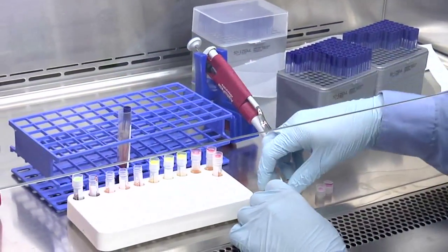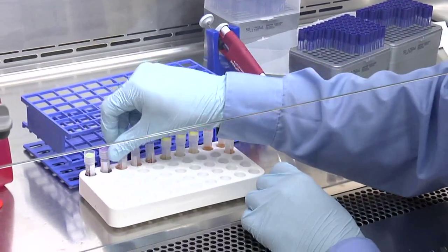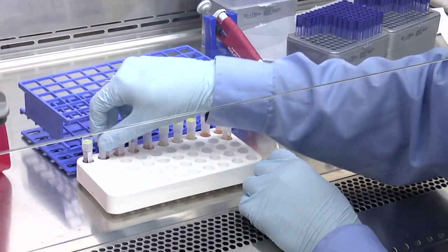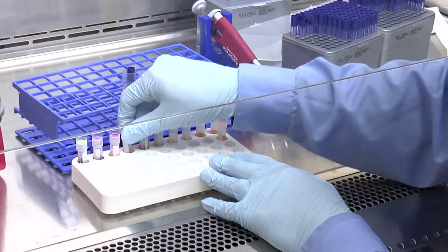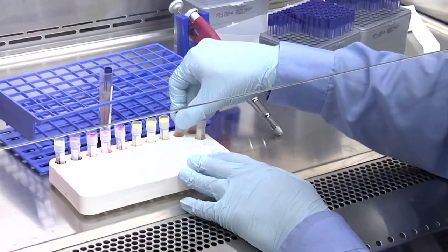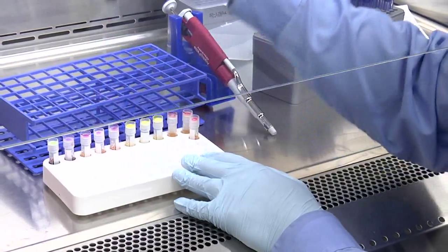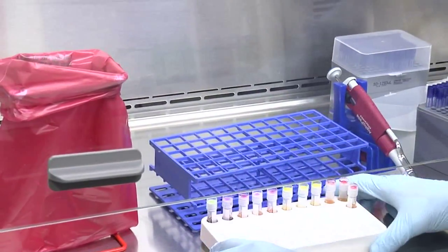The sample is complete. Place the caps back into each vial. Finally, ensure all the caps are tight and secured. Dispose of the waste, and the sample is complete.